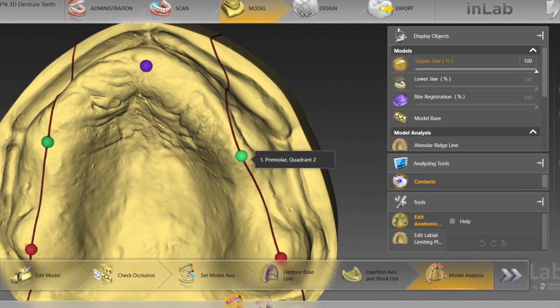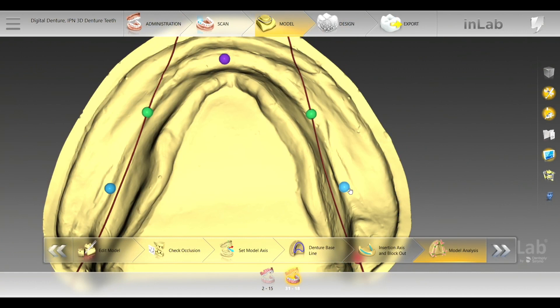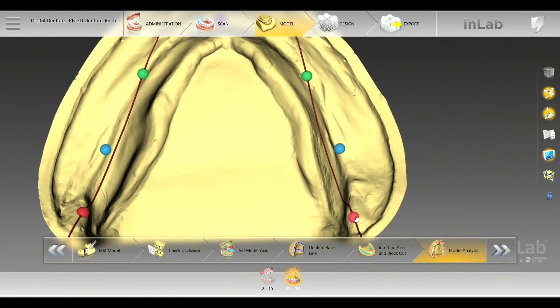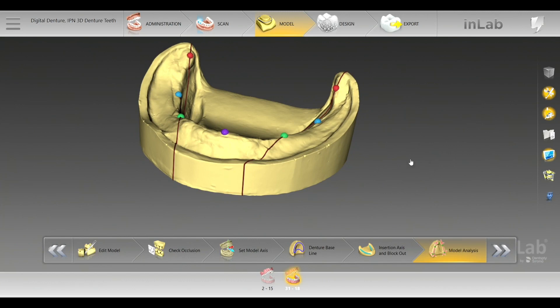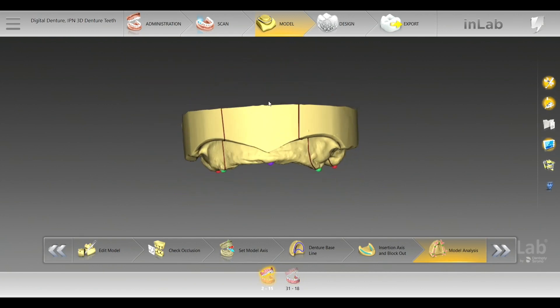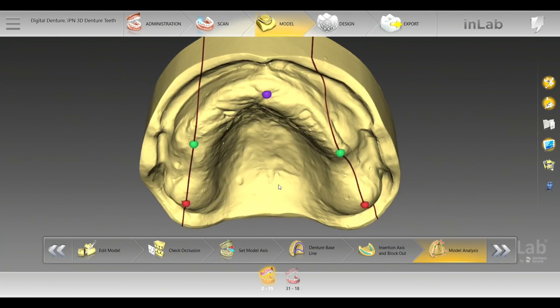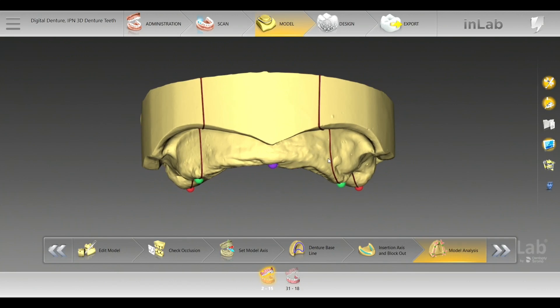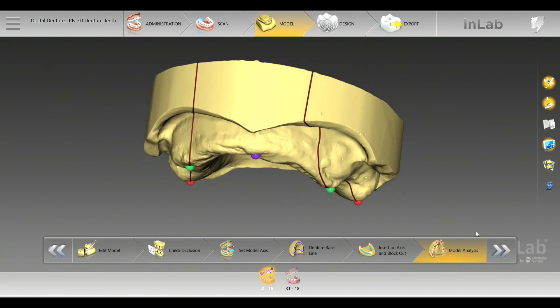When you're doing landmarks, when you're highlighting this area, the green ball is going to be the premolar quadrant. The blue ball is going to be your molar quadrant and the retromolar pad area. This gives a dentist or a technician who might not know as much the ability to read and look at what's shown on the screen. The line is your static line as well — so you can see if that's going over the ridge correctly. On the upper, the indication is going to be your incisive papilla, premolar quadrant, and then the center of your tuberosity. That's what's going to create your static line and help align the software's original proposal for those teeth.